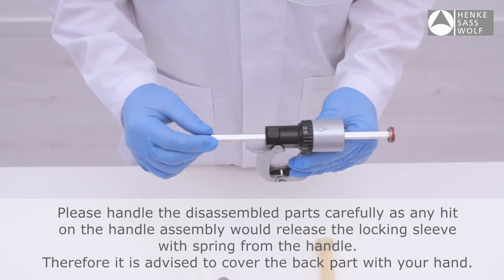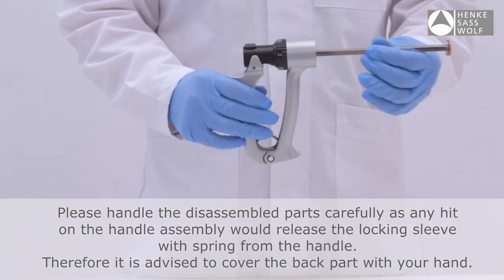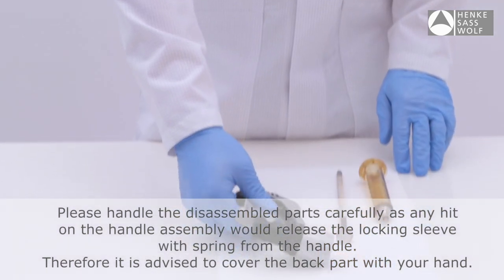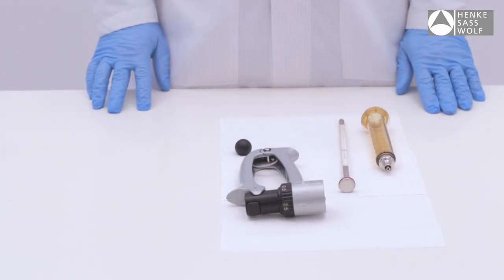Push down locking sleeve until it catches. Remove piston rod to the front. Be careful not to push the handle as this would release the locking sleeve with spring from the handle.